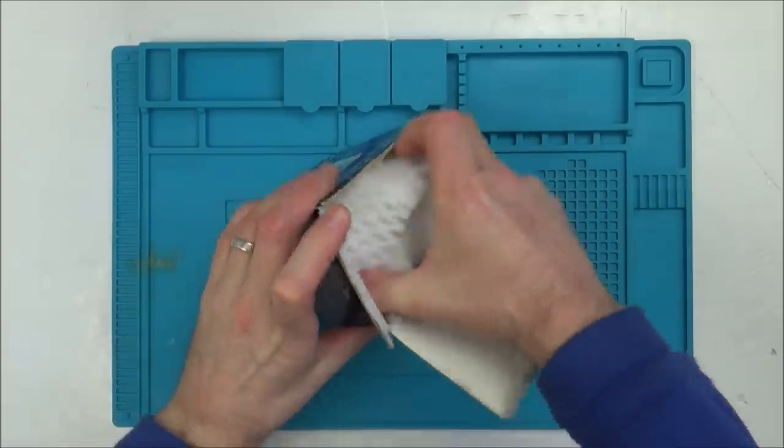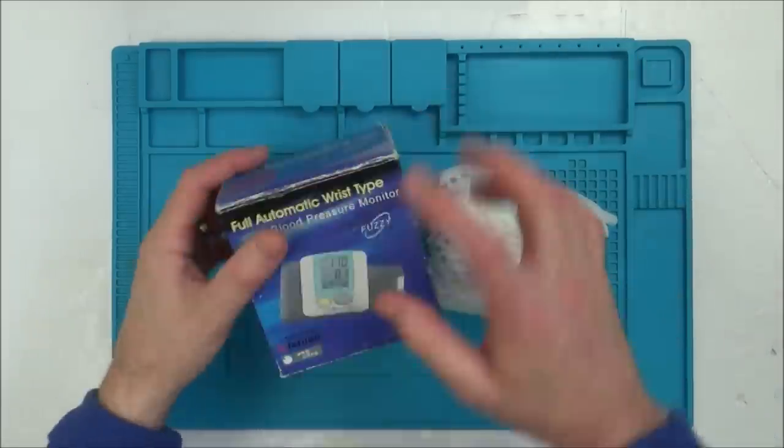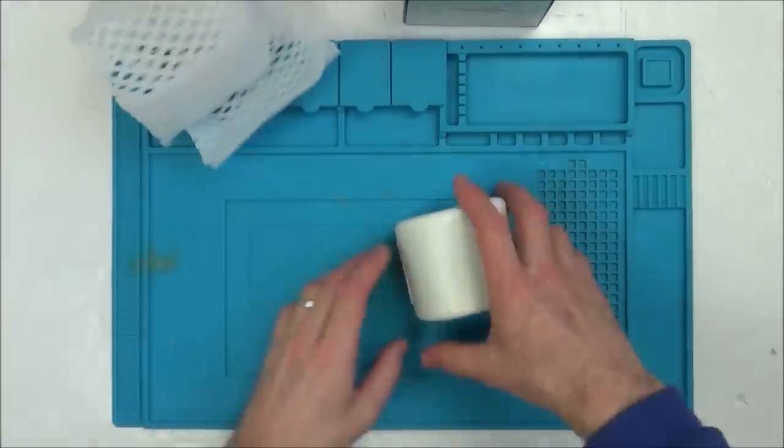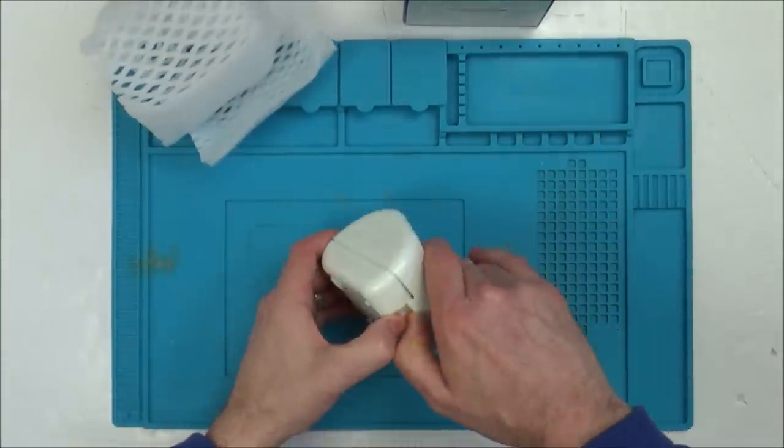I got this purely because I thought it'd be quite interesting to see the inside of it. I already have a blood pressure monitor and it's amazing the amount it does constrict your arm considering it's just run from a couple of batteries.